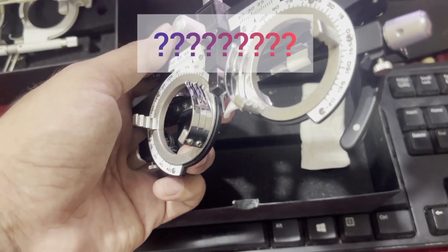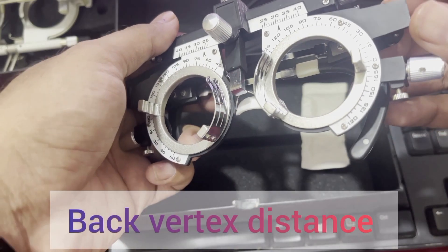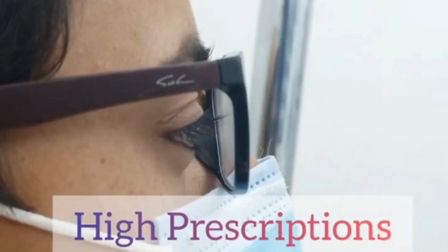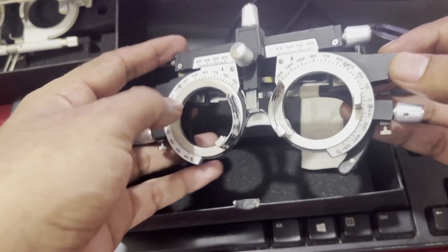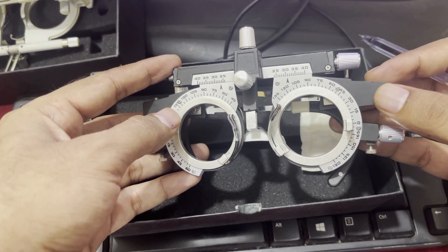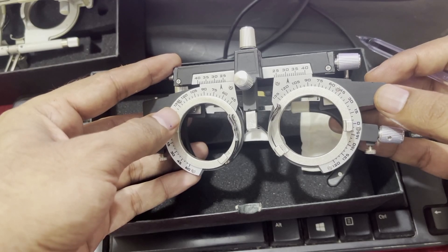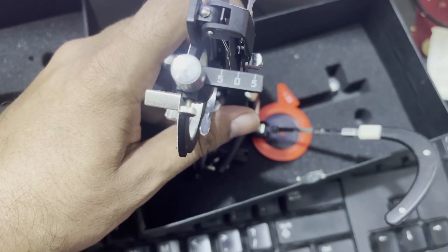The reason we adjust high powered lenses in the first compartment is the BVD — the back vertex distance. The back vertex distance is the distance between the anterior surface of the cornea to the posterior surface of the lens. If the power of the lens is more than minus five or plus five, we have to be very careful about the back vertex distance, because with different back vertex distances the effective power of the lens will change.